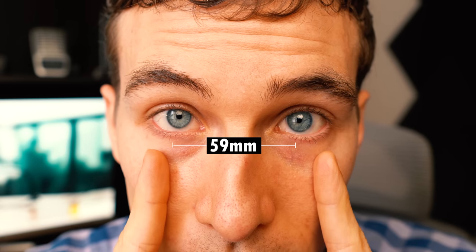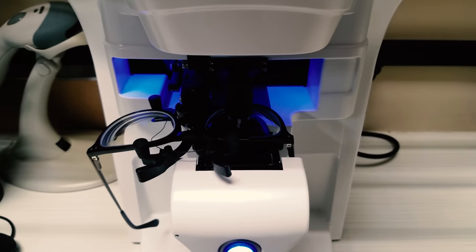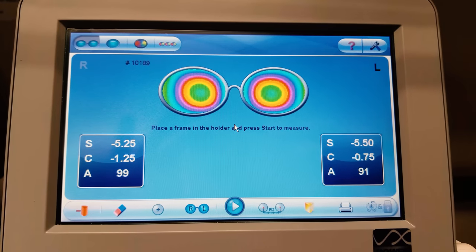Today I'm going to show you how to measure your pupillary distance. The pupillary distance is the distance between the center of your right pupil and your left pupil. This is an important measurement for eyeglasses because it tells the optician where the optical center of your lens will fit inside the frame so you see the clearest vision possible. If your PD isn't set right, you're looking through the wrong part of the lenses, and the prescription isn't valid — which can cause blurred vision, distorted or motion-sickness-like vision, eye strain, and headaches.